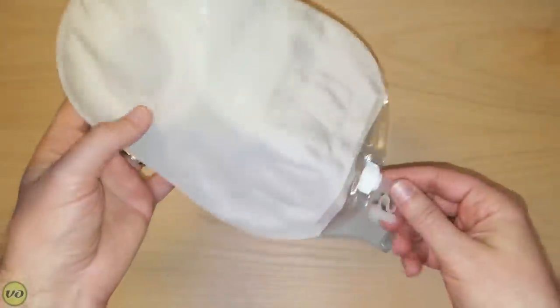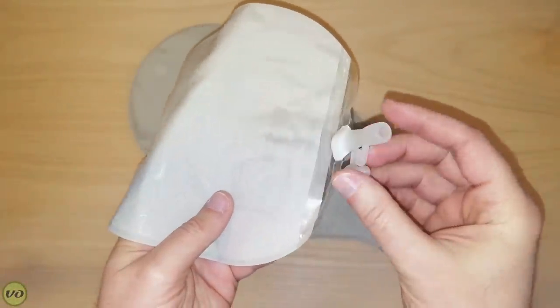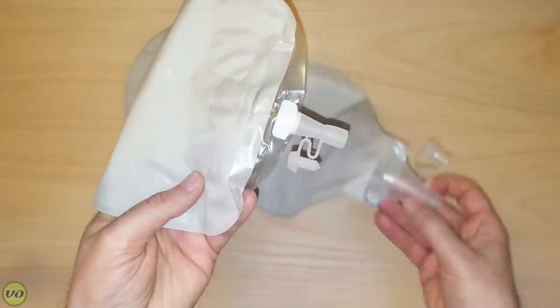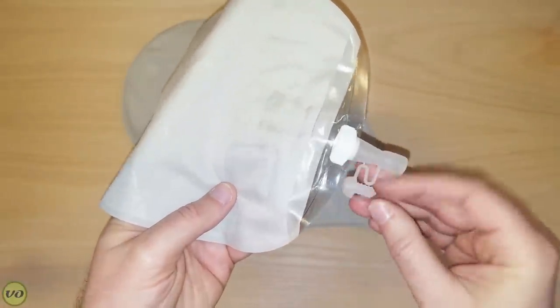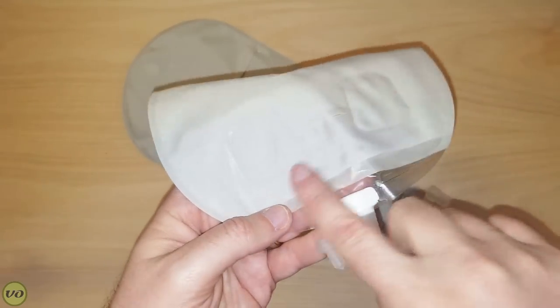This style drain is very similar to what you'll find on the urostomy bags by Coloplast. Just as an example, this is one of the urostomy bags that Coloplast has. You'll notice the drain is very similar in design — it's much smaller than what you'll see on the high output appliance, but it works in a very similar fashion. There are other features to this pouch that make it more suited to urostomates, but that's a totally different subject.